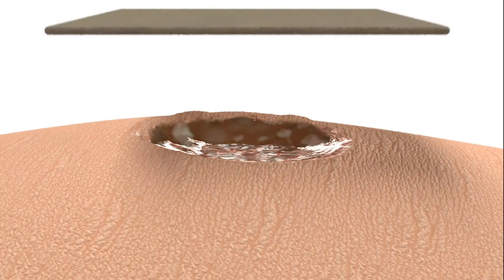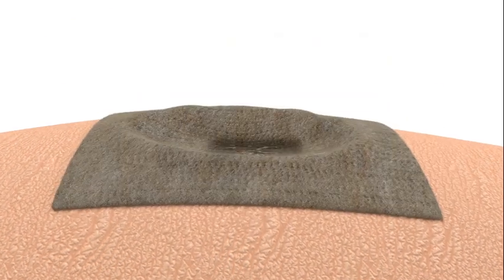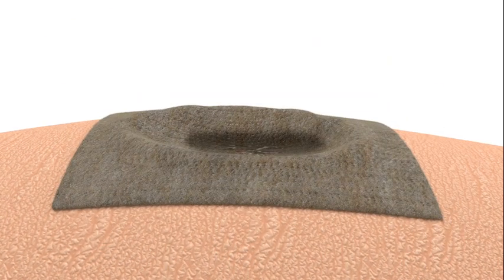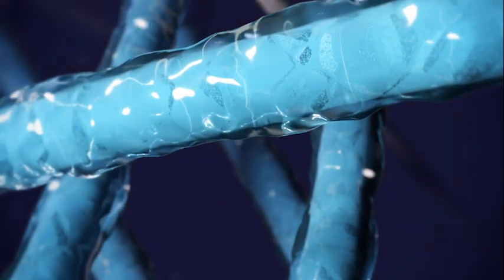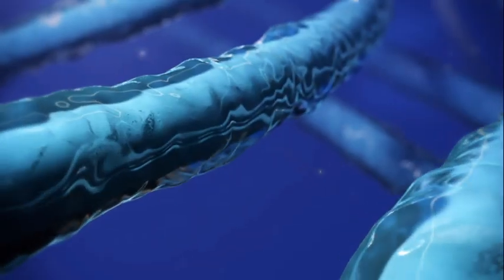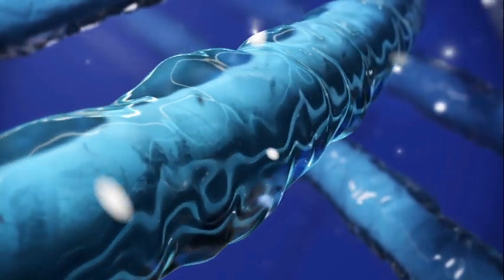When applied, the dressing responds by forming a gel on contact with wound exudate. The gel absorbs the exudate away from the wound bed, retaining it in the closely entangled gelling fibers.